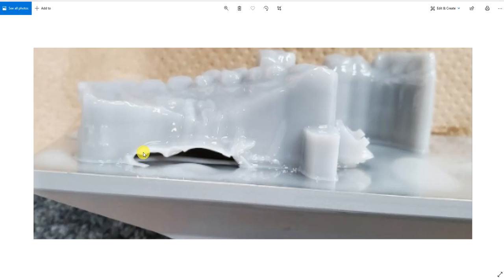Here is another example of a print with a deformation that was caused by the same situation.